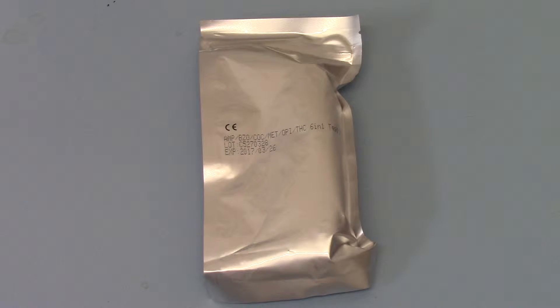In part two of the training packet for the WHPM 6-in-1 saliva tube test, we're going to show you the contents of each individual foil.